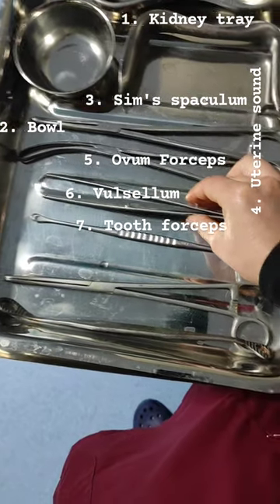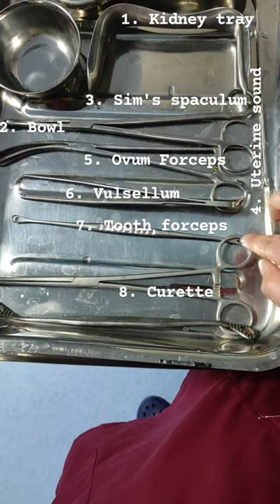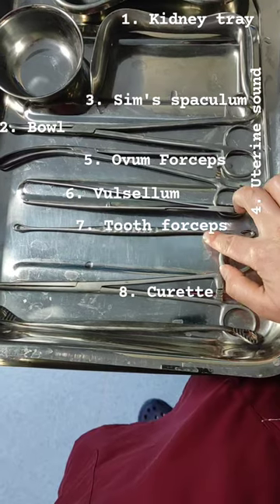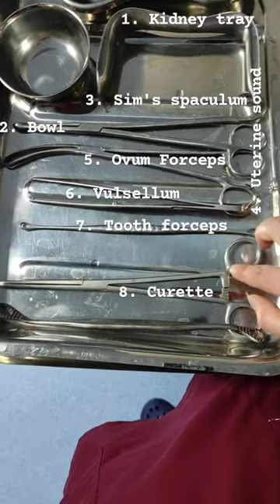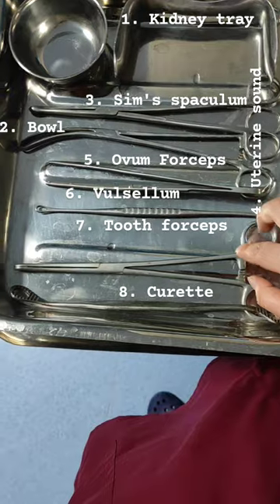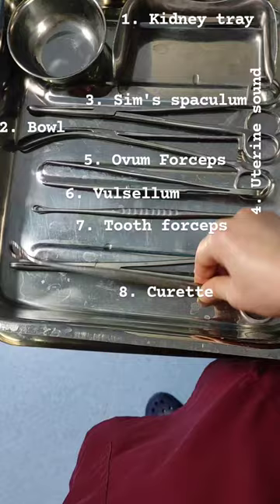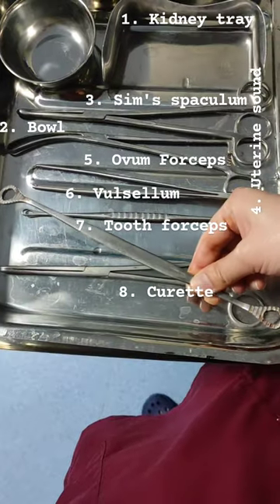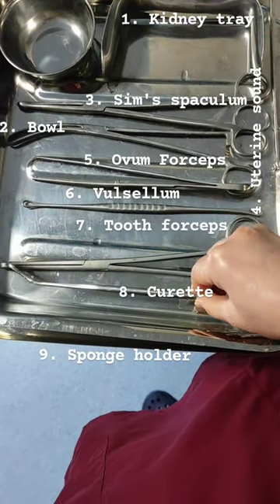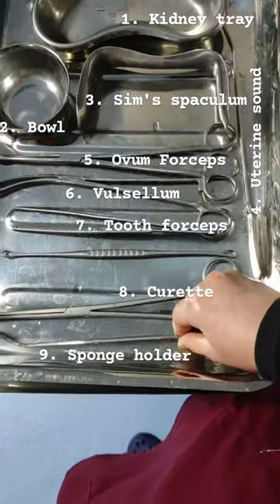Next is the curette, used to empty the uterine cavity. The curette has two sides — one blunt side and one sharp side. The blunt side is used in the case of a pregnant uterus and the sharp side is used in the case of a non-pregnant uterus. Next is the sponge holder, used to hold the gauze pieces.